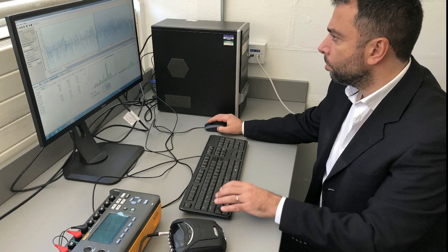A new technique developed by researchers at the University of Warwick uses the latest findings of artificial intelligence to detect hypoglycemic events from raw ECG signals via wearable sensors. The technology works with 82-percent reliability and could replace the need for invasive finger prick testing with a needle, which could be particularly useful for pediatric age patients.